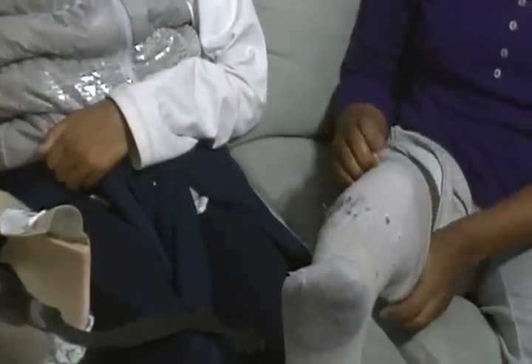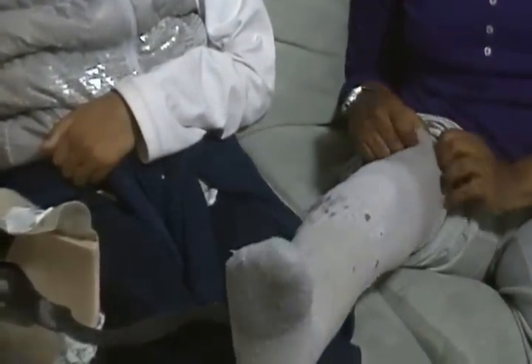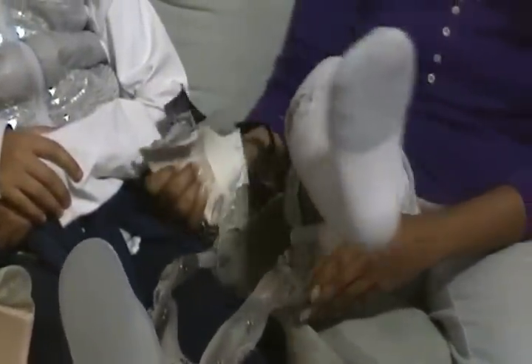Roll the sock back up and put it back on. I wear the brace 24/7 — I wear it to bed, I wear it when I go swimming. The only time I do not wear it is when I get in the shower; I do take everything off.